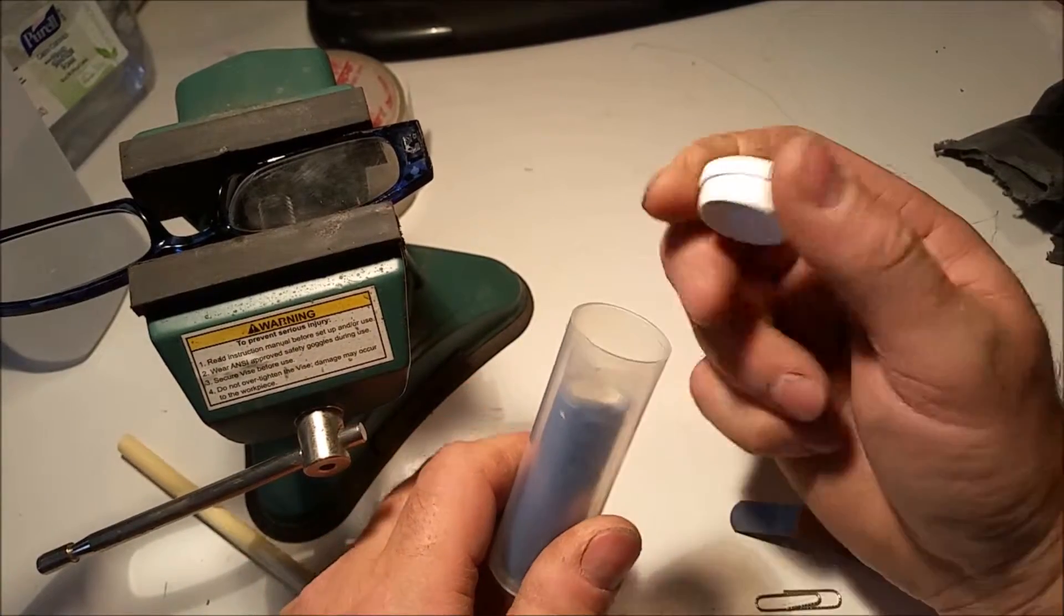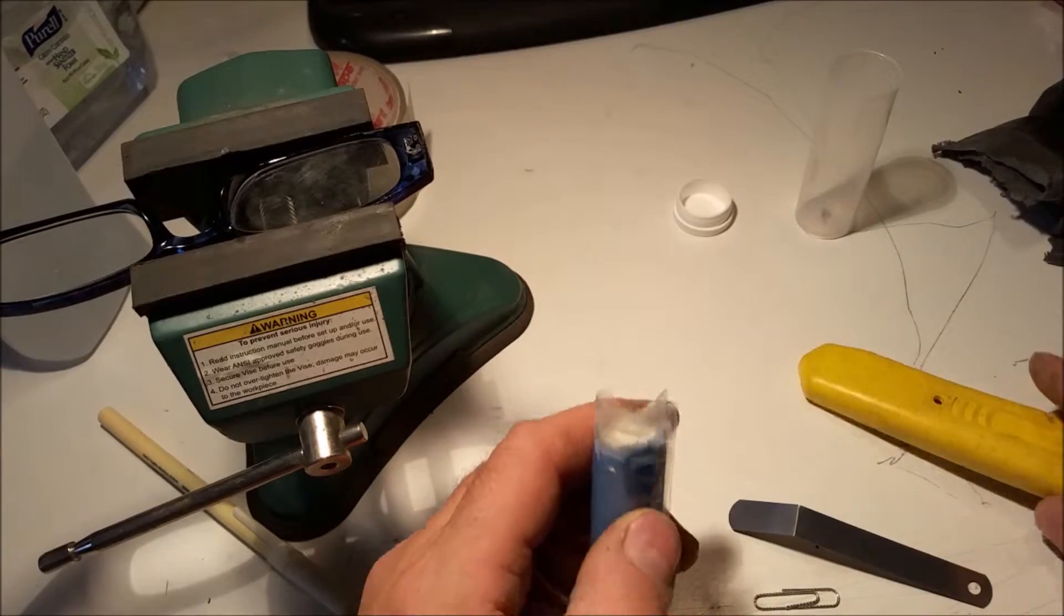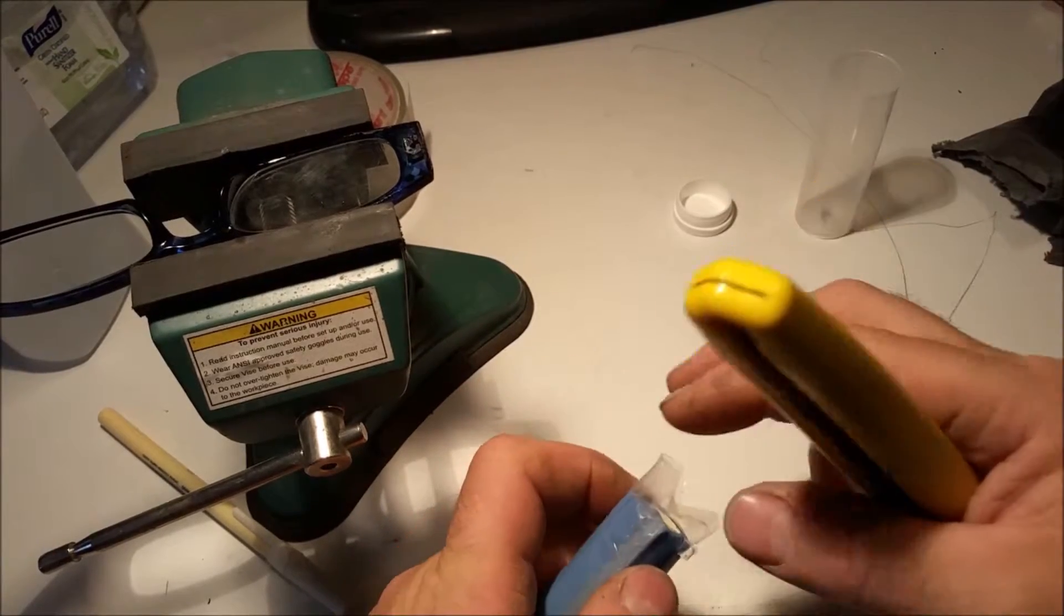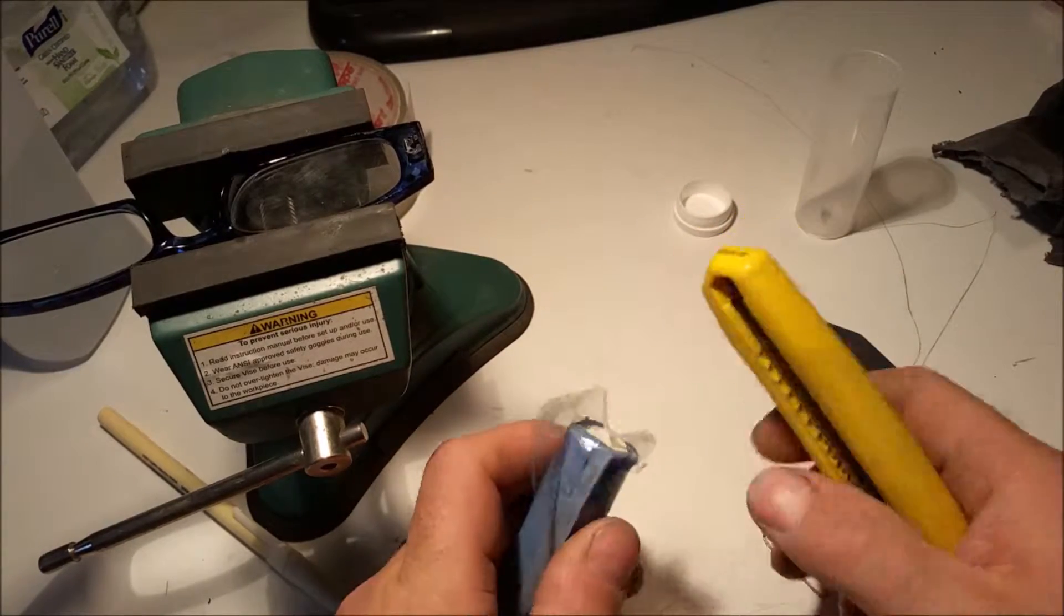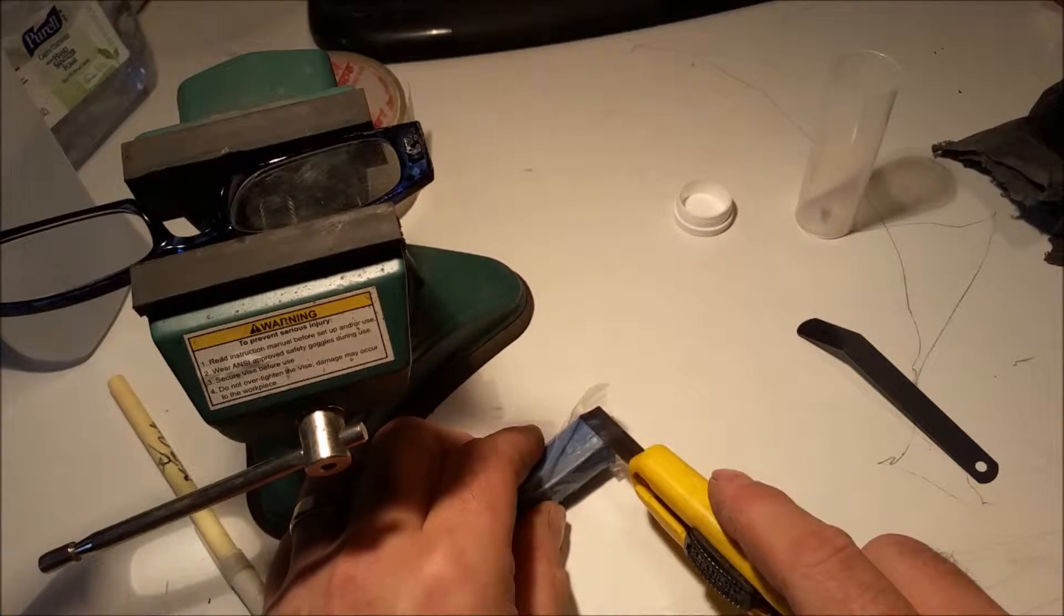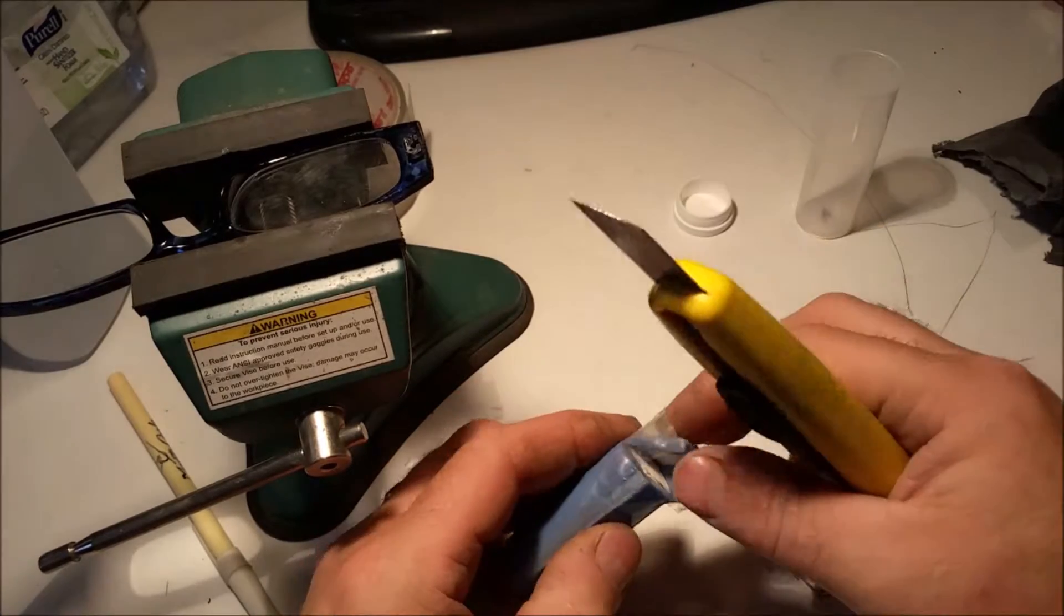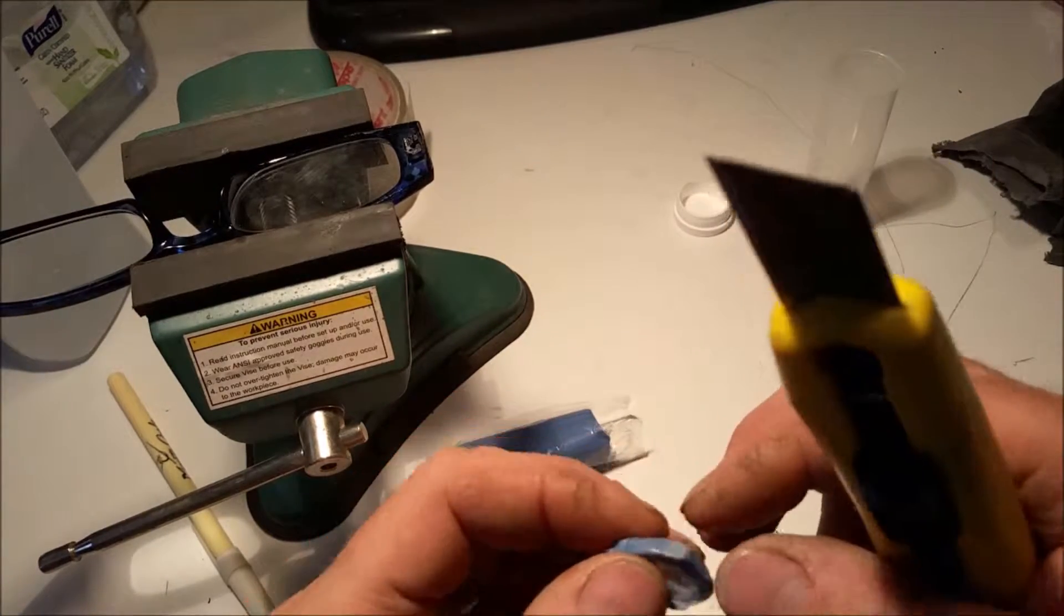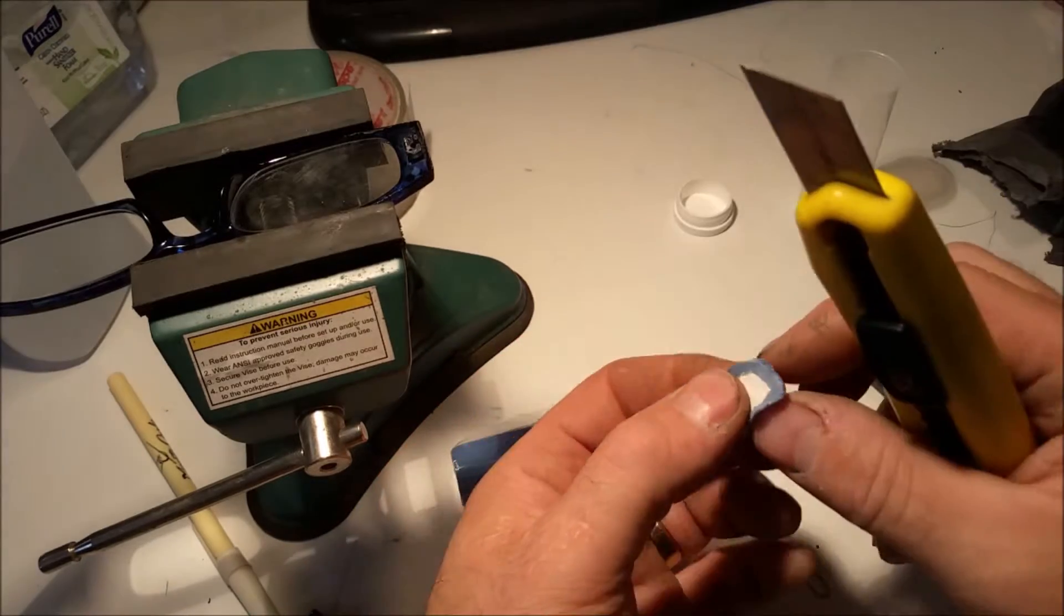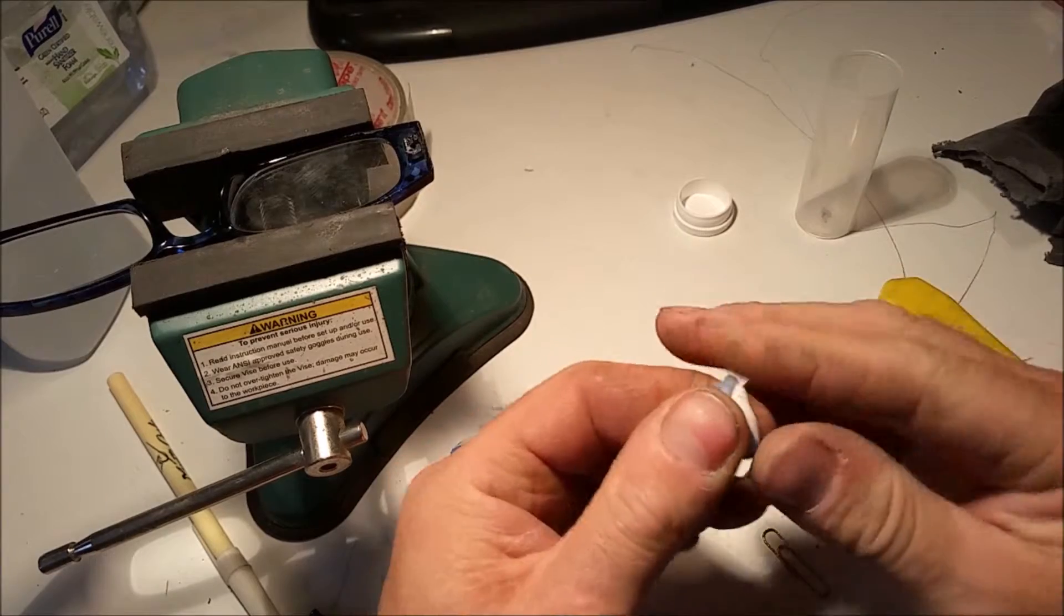We're gonna cut a little piece of this. Not much, just whatever fits in there. A little tiny piece. It's even too much, but oh well. Take off the plastic and start mixing it.